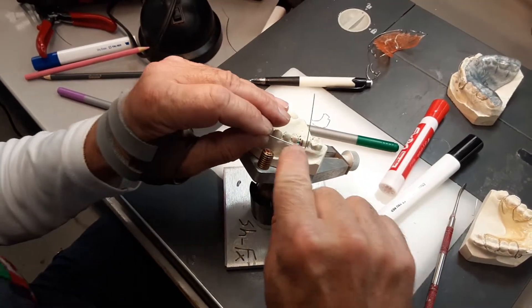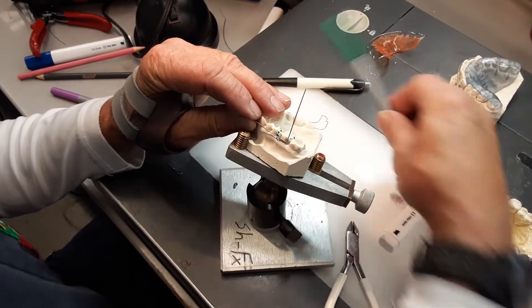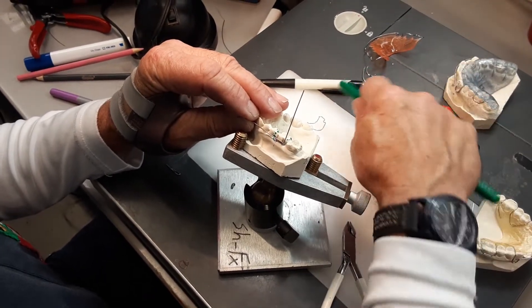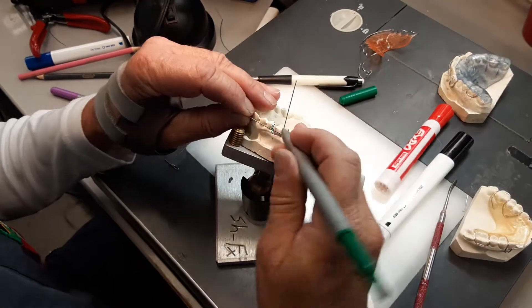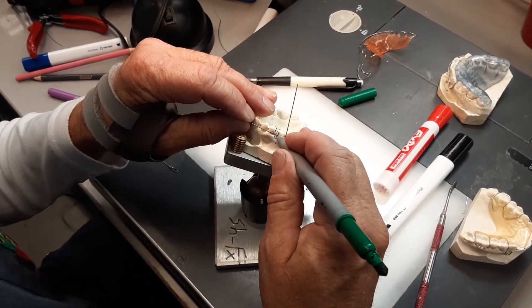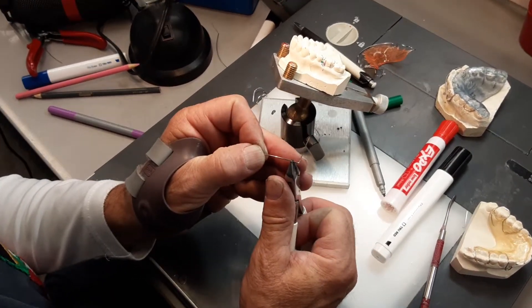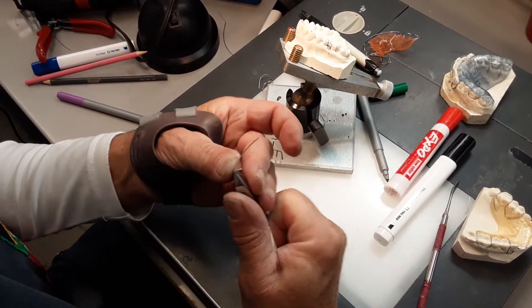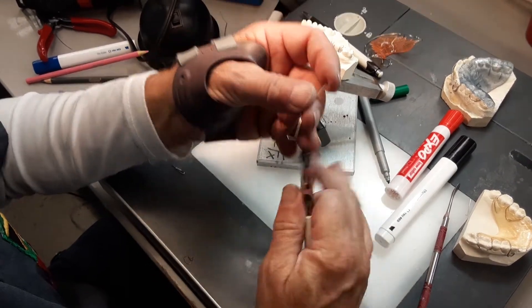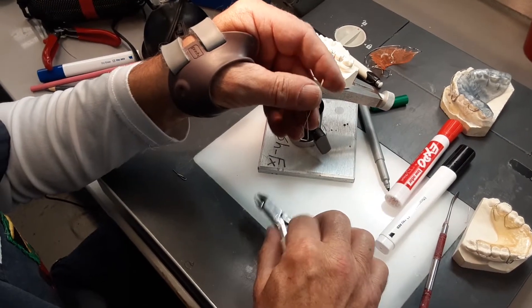We had a technical error so I've already made the first bend about 70 degrees, just off the center of the wire, and that's the wrong side of the marker. I'm going to lay that across the tooth and then mark where the line is for the cusps on the other side of the tooth and make the other — so I've got a little triangle there.